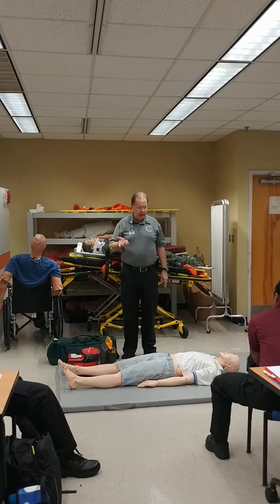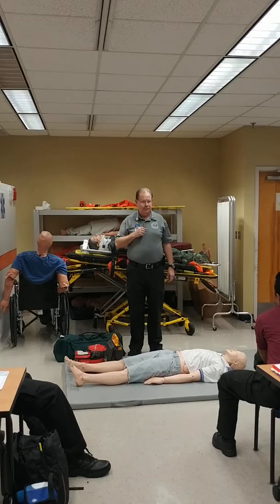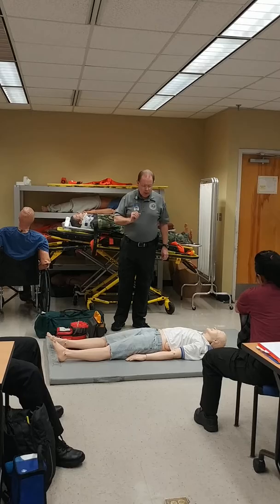What's going to happen if it says shock advised and you're about to push that button but the patient is looking at you? Remember: don't treat machines, treat patients. We never place the pads on the patient until we assure there is no pulse.